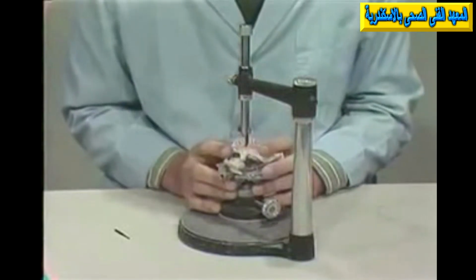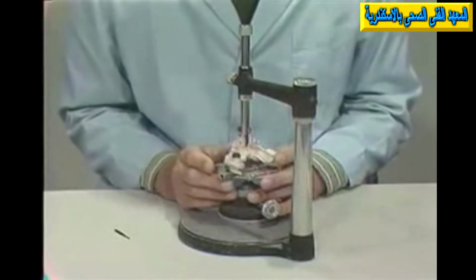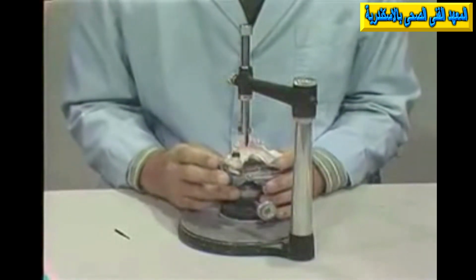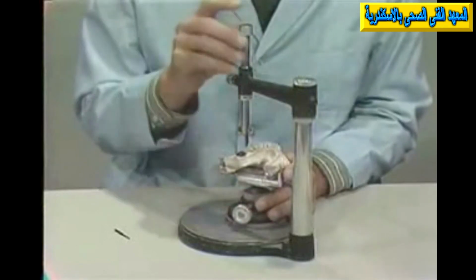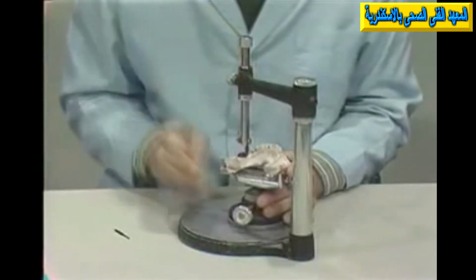Now, in constructing a wax pattern with the Surveyor here, I'll demonstrate a little bit on a work model I've already set up. This work model here has the preparation recorded in rubber base, and the cast has been surveyed to be parallel with our lines as far as our path of insertion and removal. And we are interested now in having a pattern carved to the requirements that we have for this partial denture. And you'll notice that I have a wax pattern on here, and I have a flat carving blade on here, and this is the reciprocal surface.